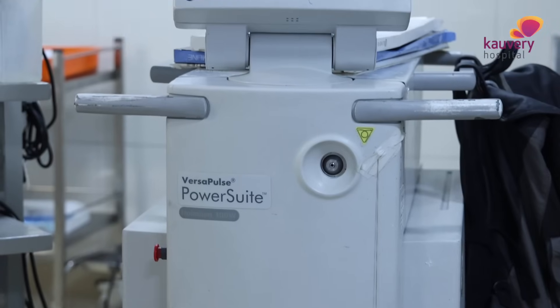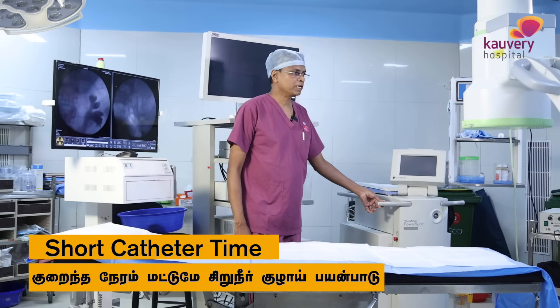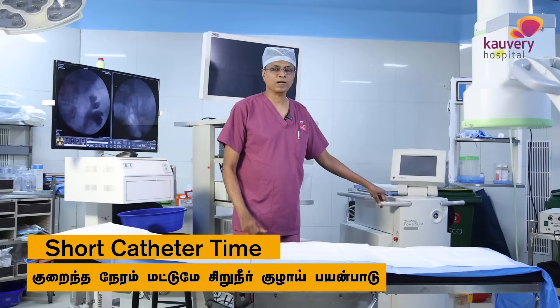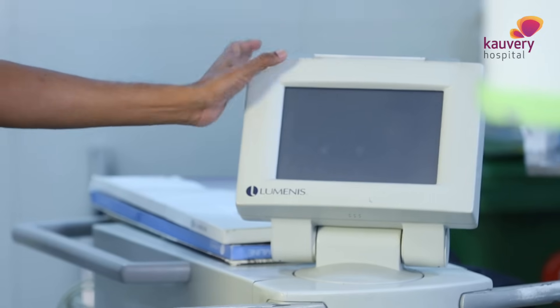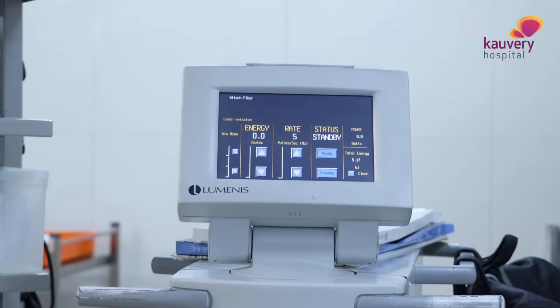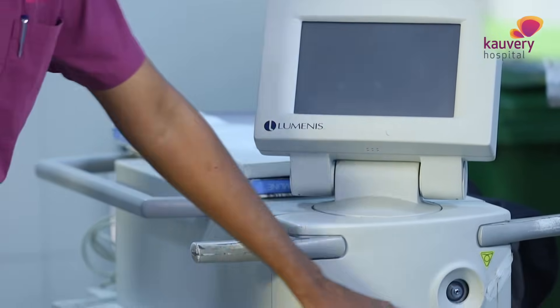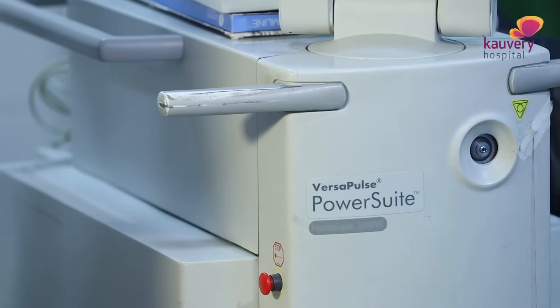You can use this procedure with the appropriate gadgets. This is a 100 Watt Holmium Laser Machine. If you are using it, the procedure is faster. For coagulation and controlling bleeding, this is an easy instrument. This display tells us how many watts to use per patient. This is the laser fiber through which the laser energy is delivered.